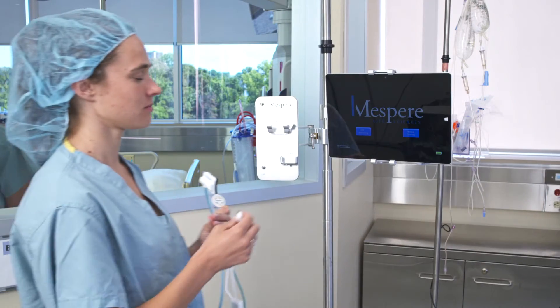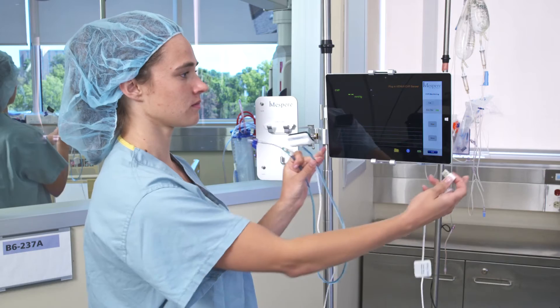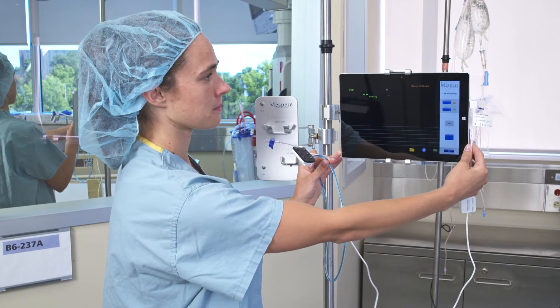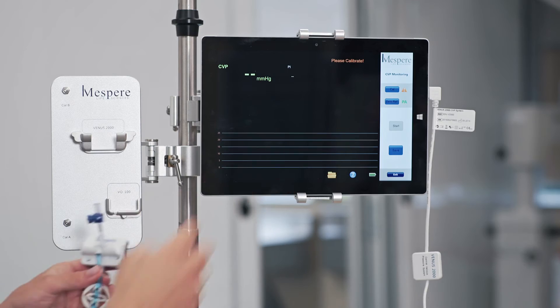Touch the screen to select the CVP application. Plug the Venus 2000 sensor into the USB port on the right side of the monitor. If calibration is required, a Please Calibrate message and Orange Caution Triangle will appear.